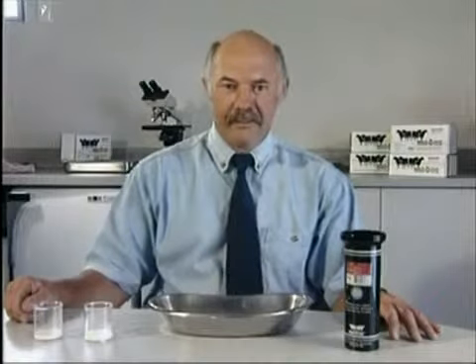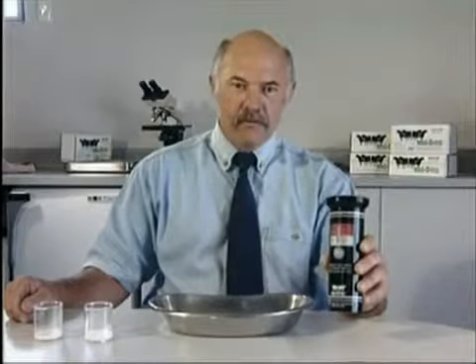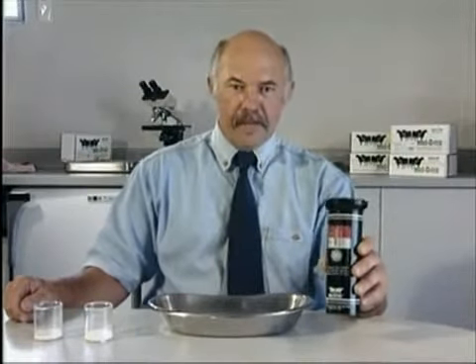Both can cost you a bundle and penalties are getting tougher. This is Mastitec. It's the latest instrument from the USA for the quick identification of mastitic milk.